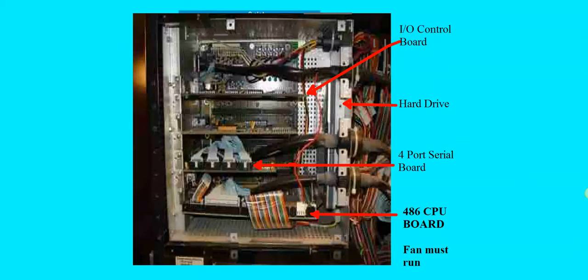which consist of an 8-slot backplane board, a 486 PC board, a 4-port serial board, possibly a VGA board, a hard disk drive, a cable going to the hard disk drive, 1 input-output control board, and a cable going to the floppy disk drive. Main function of this unit, it simply handles all of the STA Compact software. Communicates with the user through the use of the keyboard and the monitor.